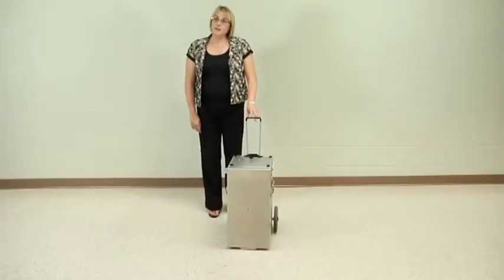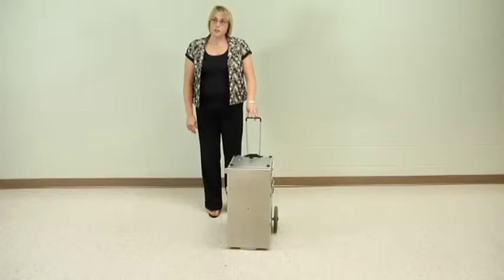This next unit is called a safari unit. It's another one of the mobile units that only relies on an external power source and has its own built-in compressor.